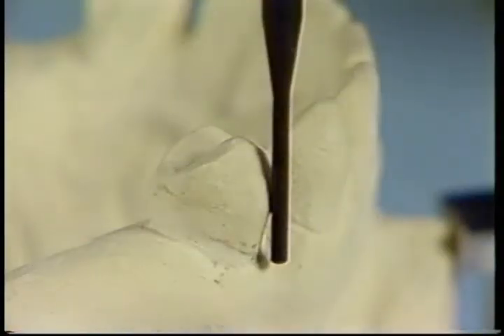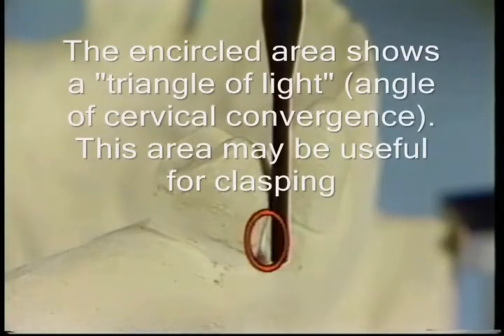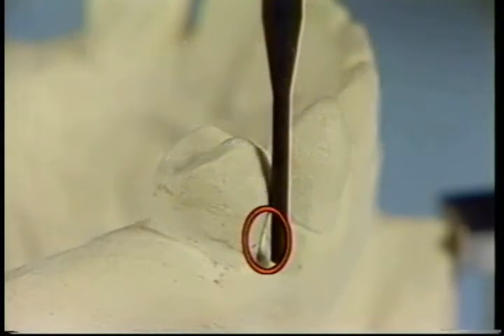Next, examine the facial and lingual surfaces for potential areas of retention. The analyzing rod demonstrates a small triangle of light, known as the angle of cervical convergence. This area is useful for retentive purposes.